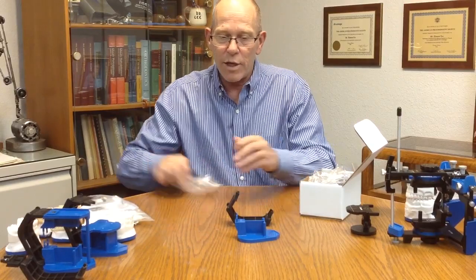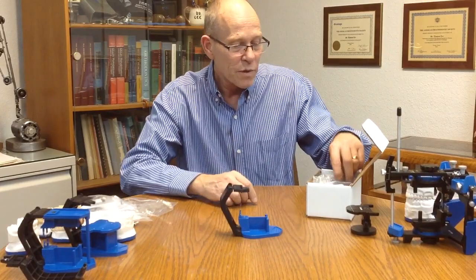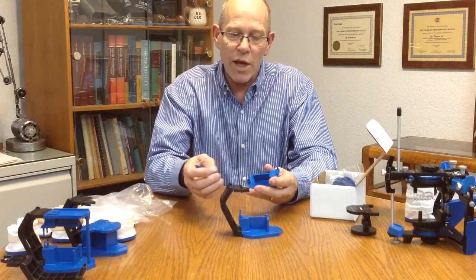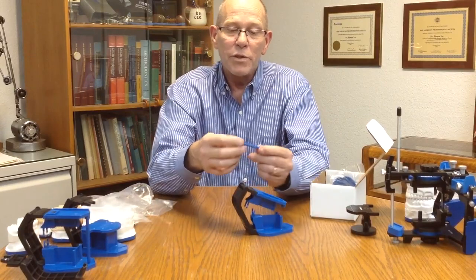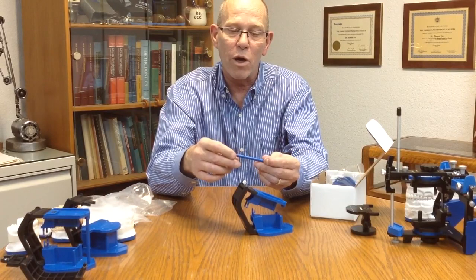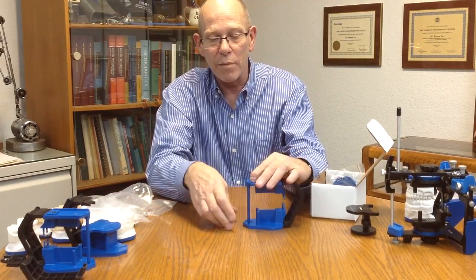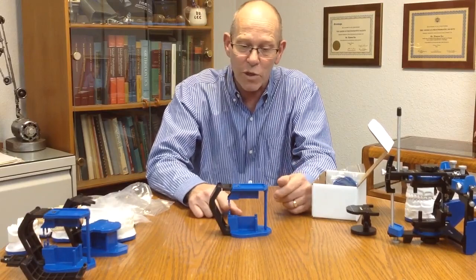Also in the system is the lower digital adapter, and that is simply put onto the lower frame by snapping it into place. Then we also have the upper digital adapter, which also comes with an incisal pin, and that can just index right to the PAL upper member. The incisal pin has a smoother end and one end with a little molding mark, so I like to put that end up into the front here, push that up, and now we have basically an articulator with an incisal pin.